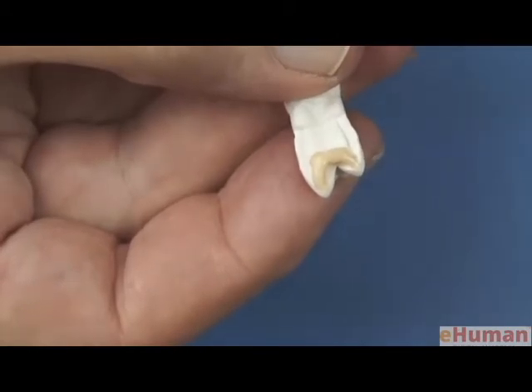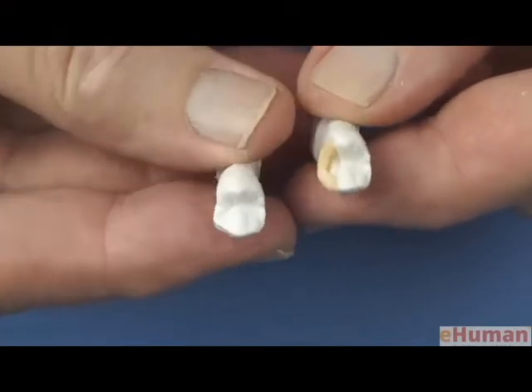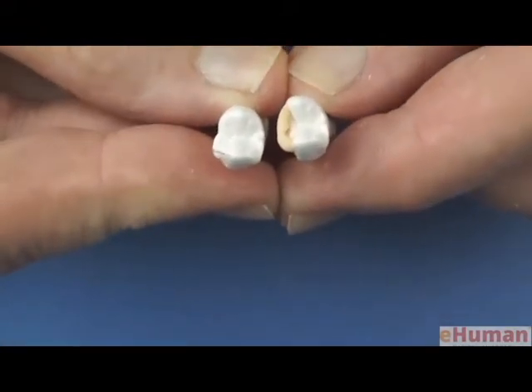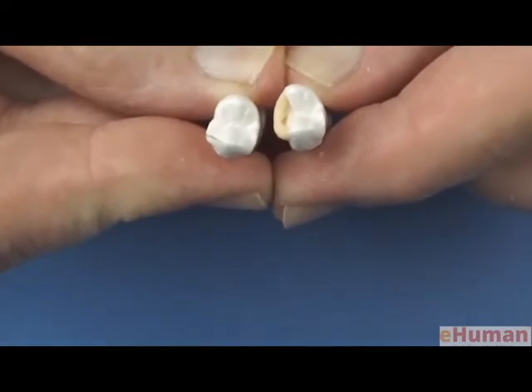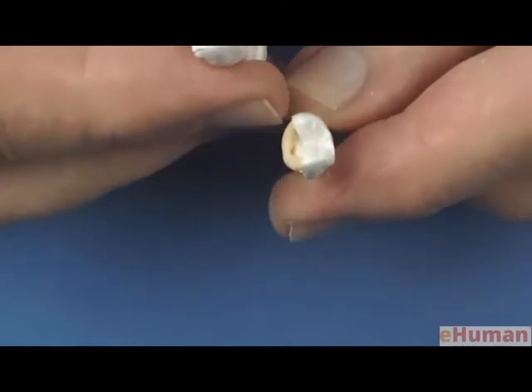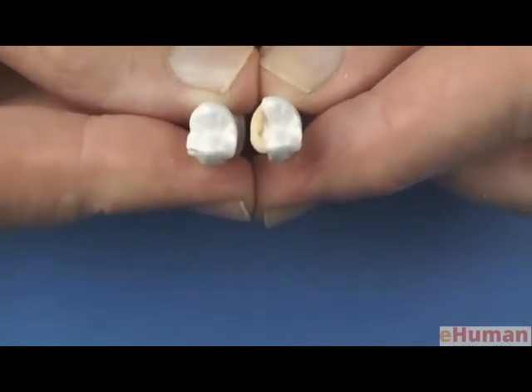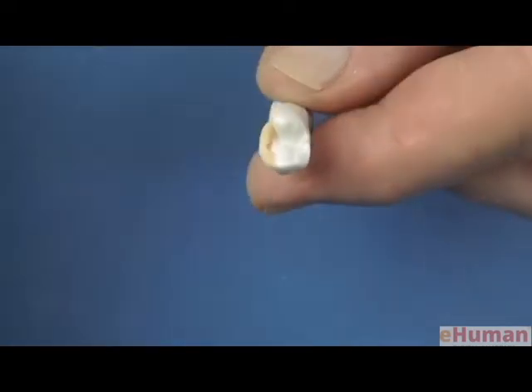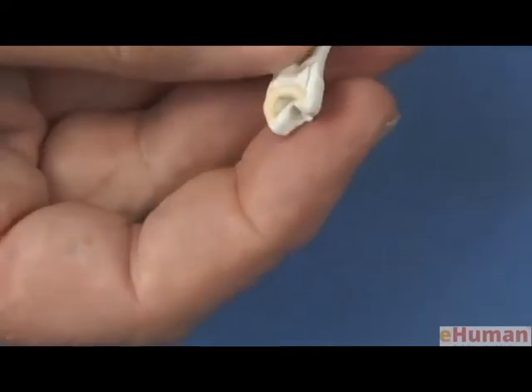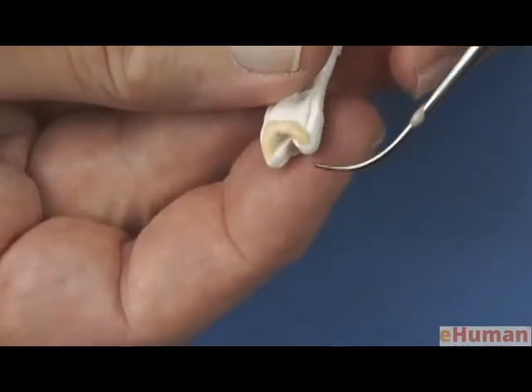At this point you actually could tip the tooth up, and you could start looking at the contour from an occlusal view to see if you have sufficient wax added to the tooth. You can see right here in this area where my fingernail is, we're a little bit deficient. So I just need to go back and add a little bit of wax to the lingual aspect of the surface, and that will give us sufficient bulk.